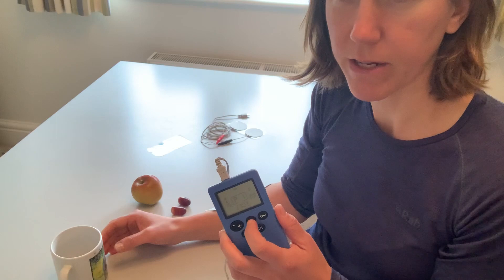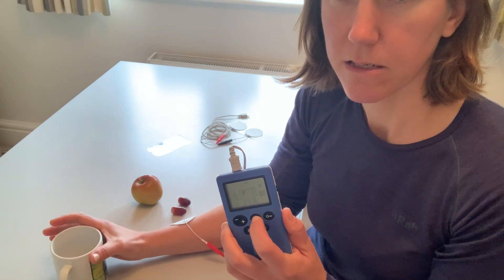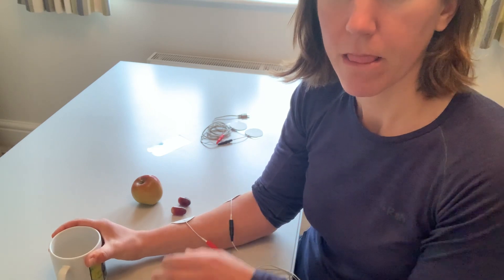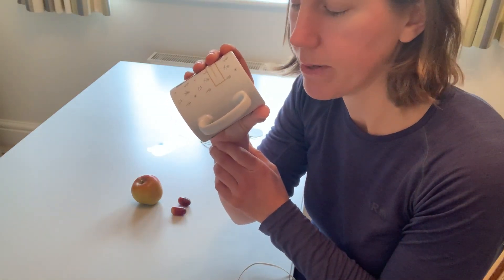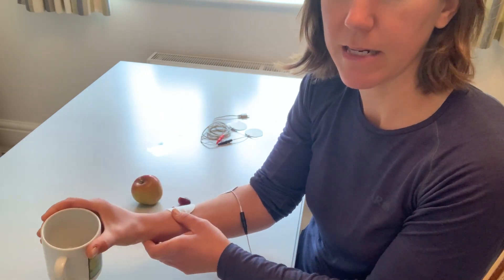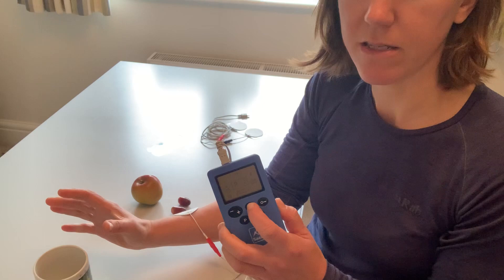If I go to the cup again, I'm going to press the T button to open until I've got my hand in place. When I'm happy, I let go and squeeze. I'm going to use this to take a sip — in this instance I haven't got any fluid in it; that will depend on your ability level. I take it back down again, and then really try and think about relaxing and opening the hand before giving it that extra help with the T button.